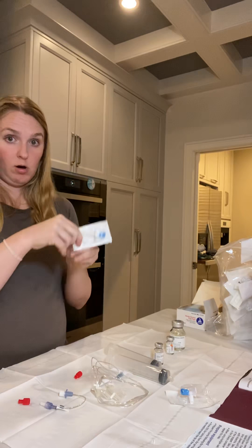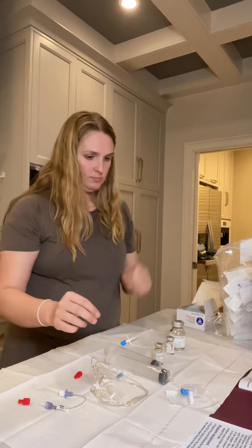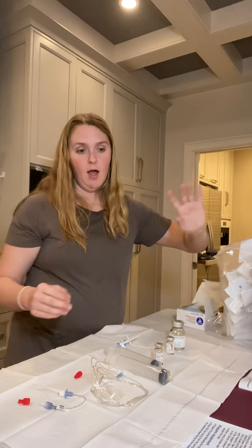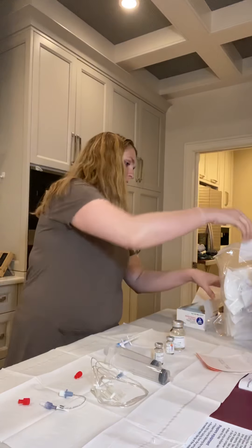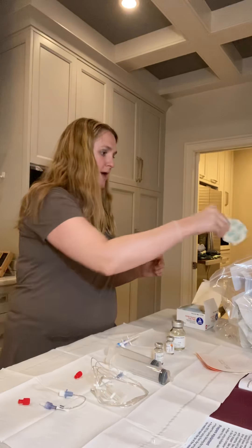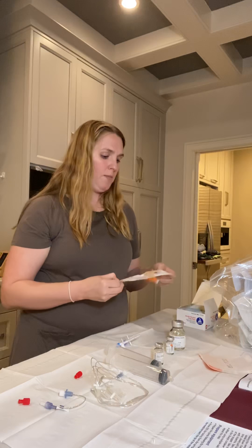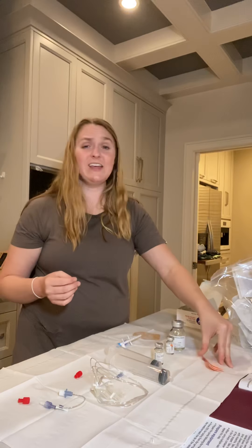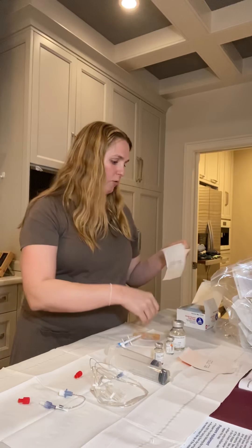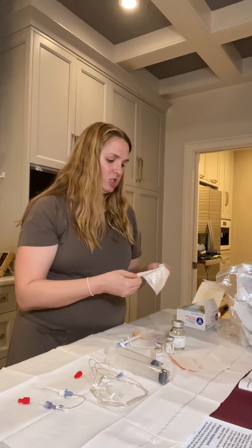These are the transfer needles — they get the solution from the bottle into the syringe. They have caps that I'll take off when the time comes. I have two because you have one needle per syringe. These are the bandages — or rather the adhesive covers. They originally came with everything and still come with each tubing pack, but I had a bad skin reaction to the original ones, so these are hyper-sensitive bandages. Basically what they do is tape the needles on so that everything stays in place throughout the infusion, which gives you the ability to get up and move around. I'll go ahead and pre-open all of those so everything is ready.